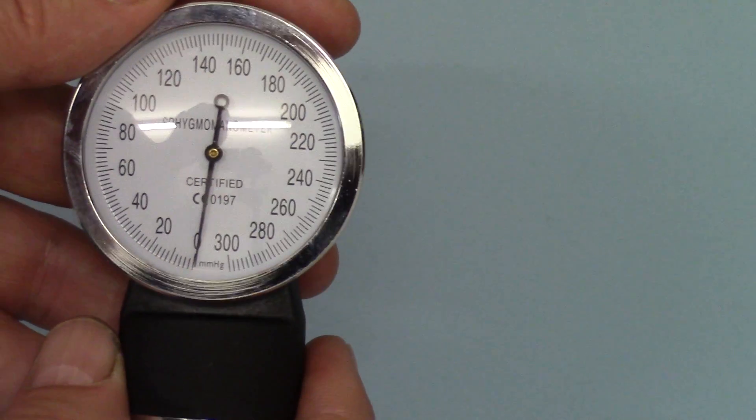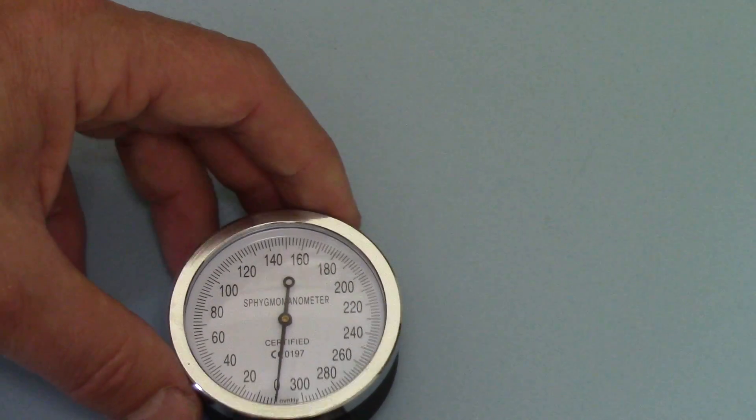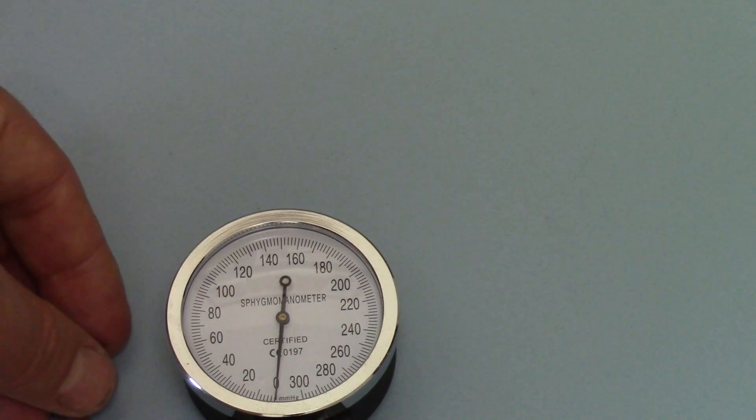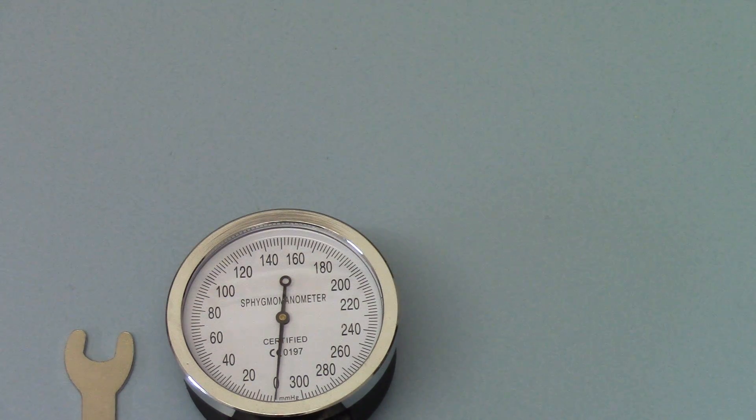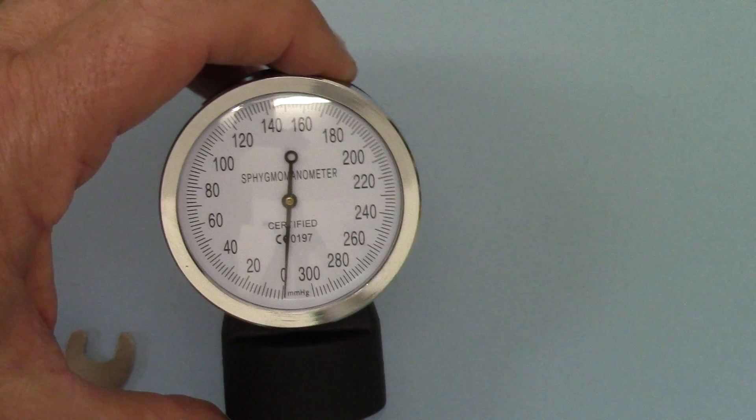That's all you have to do on the first or initial setup. Just with the little spanner make sure that it's accurately pointing at the zero before first use and that will ensure that you're getting an accurate reading.